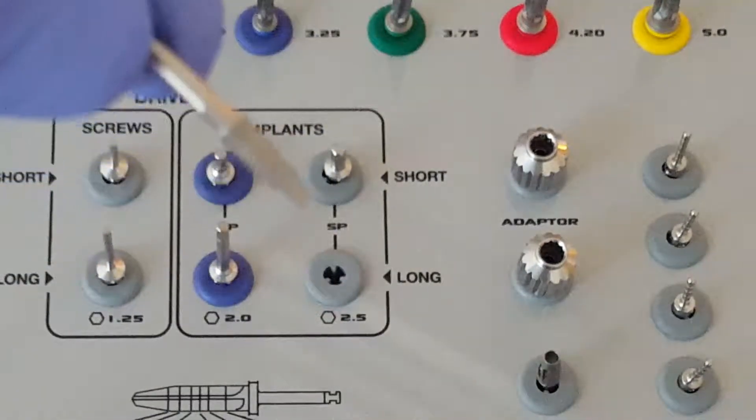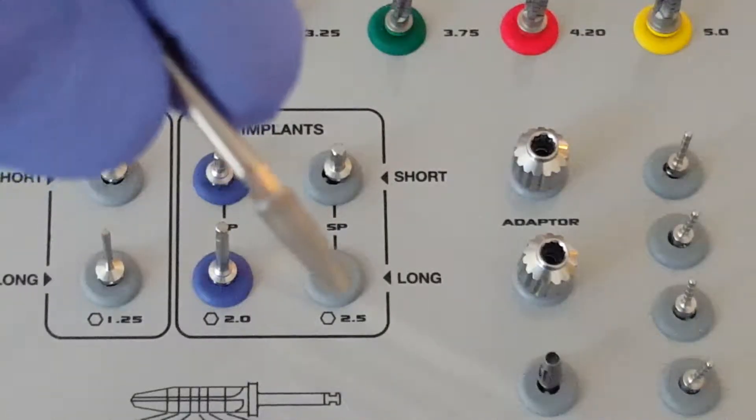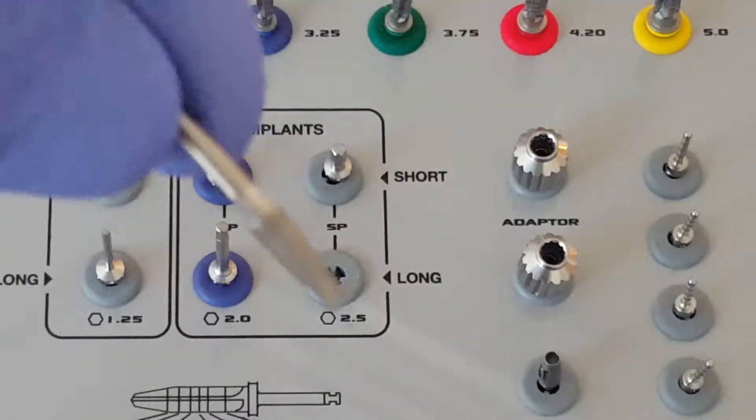This can be driven many ways. It can be driven by the handpiece. We would drive it at 25 or 27 rotations per minute.